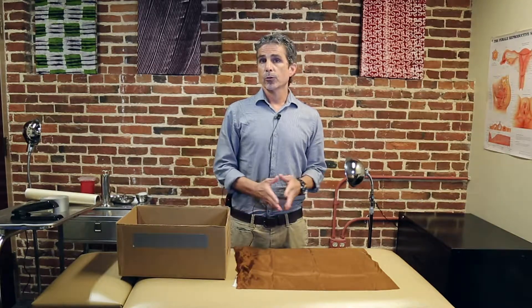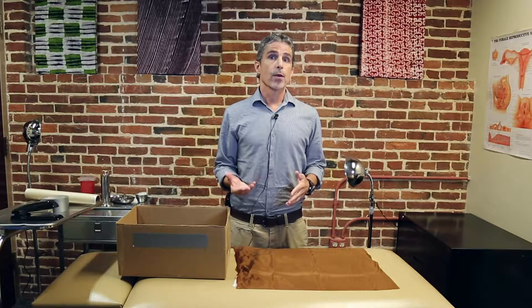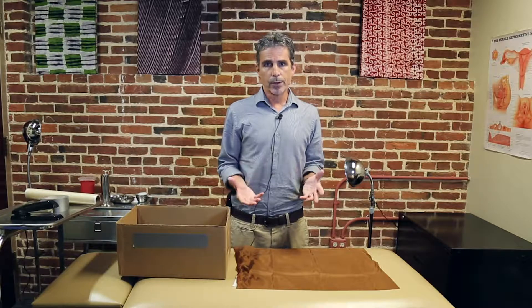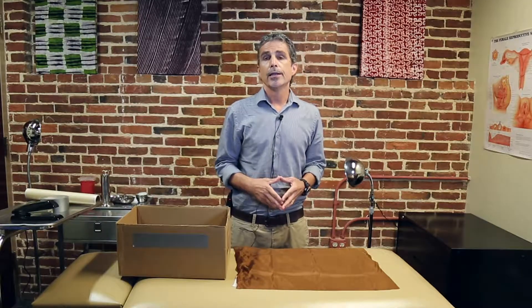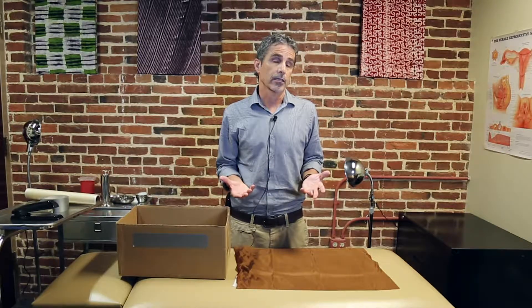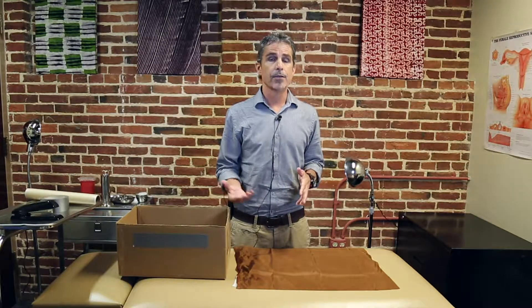Hi, I'm John Varallo. I'm the Global Director of Obstetric Surgery at Jhpiego. In this video, we're going to show you how to create your own low-fidelity, low-tech box simulator for cesarean section. The purpose for creating this is twofold: one is that it gives you an opportunity to practice the surgical technique itself, and it also serves as an anchor for the simulation around using the surgical safety checklist. I'm going to start by showing you some of the materials you'll need, and then show you how to put them all together.